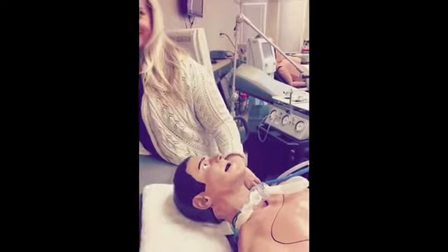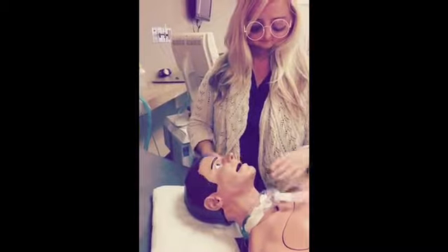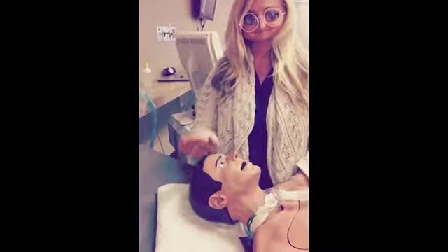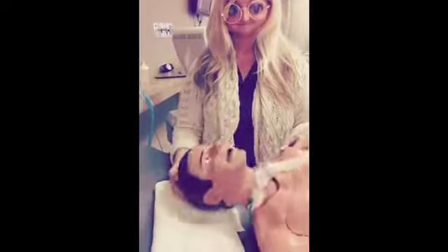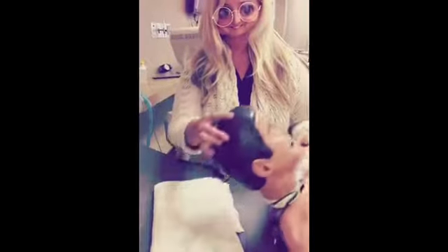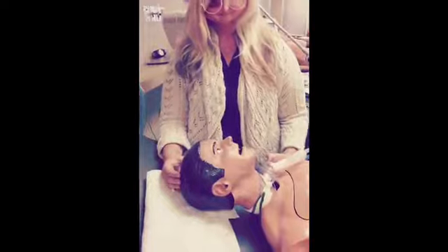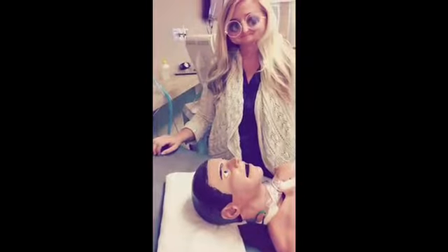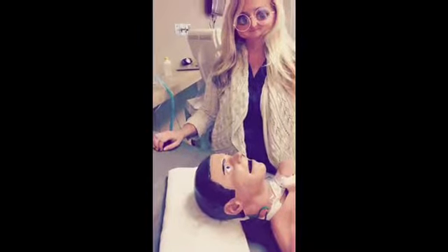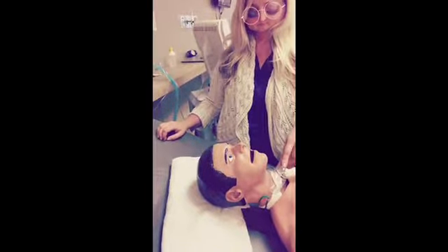Indications for this device would be chronic O2 therapy needs for a tracheostomy patient. It is comfortable and convenient, and allows the patient to be more active than with a T-piece. Contraindications: it's not useful for patients without a tracheostomy tube. Hazards and complications include that extra care should be taken to be sure the bottle does not go dry, since heating elements do not have automatic shutoffs, and this could be a potential fire hazard. Also, more moisture will accumulate in the aerosol tubing with heated mist.